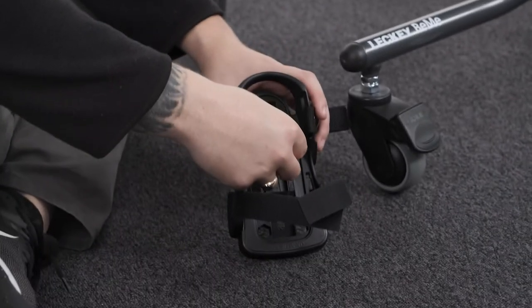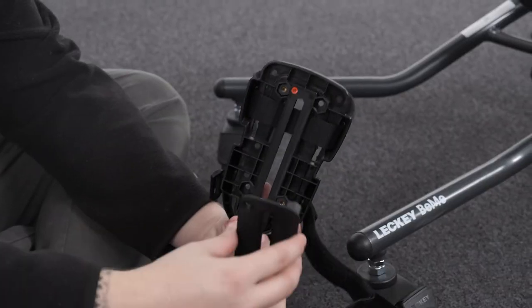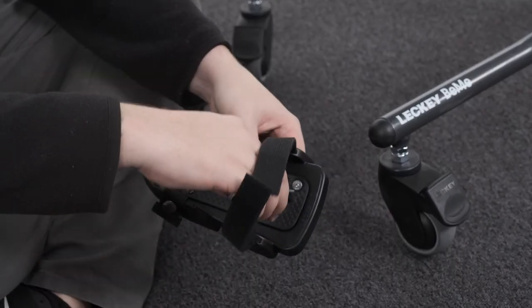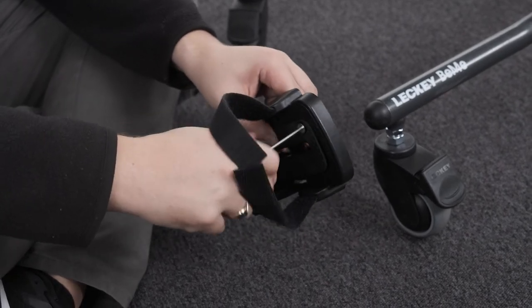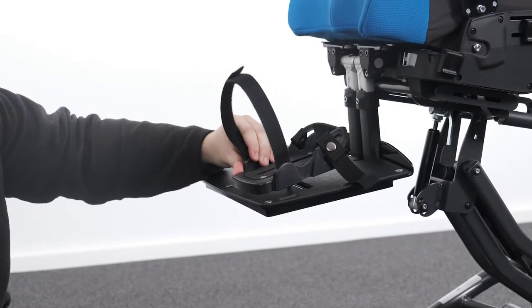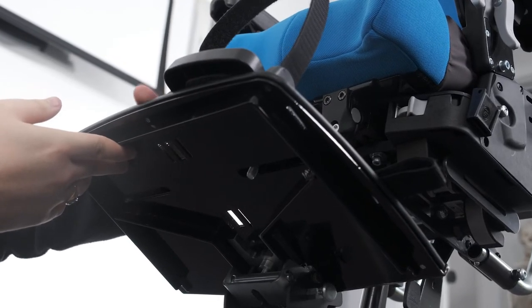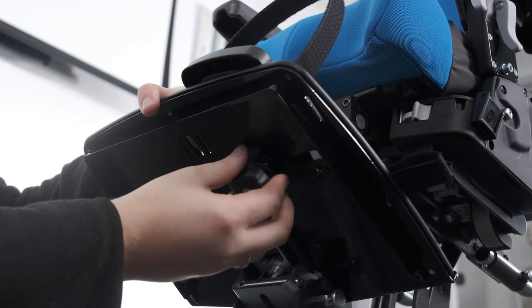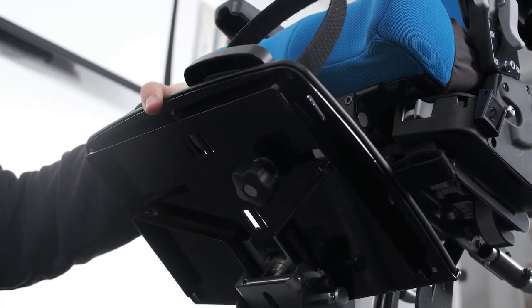Attaching the sandals. Insert the required attachment bolt along with the retention plate. Place a rubber lid on both the top and bottom of the sandal and fasten using the four screws provided. To remove or replace the attachment bolt, reverse this process. To attach the sandal, place it on the foot plate so that the attachment bolt goes through the slot in the foot plate. To secure, place the rubber washer, metal washer and knob onto the attachment bolt on the underside of the foot plate and tighten.